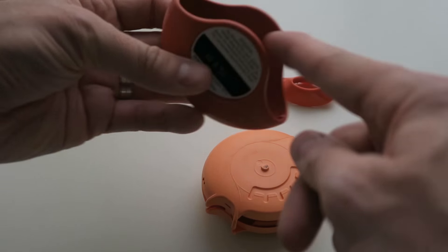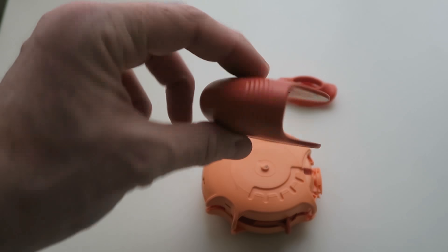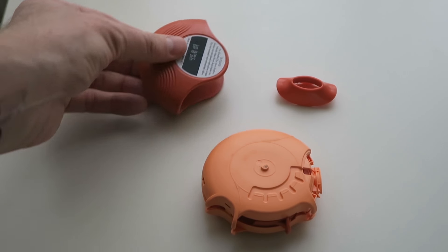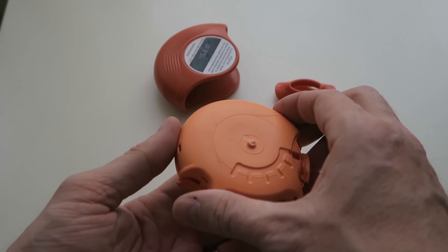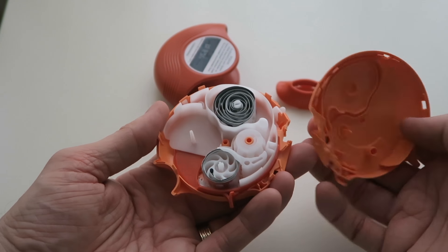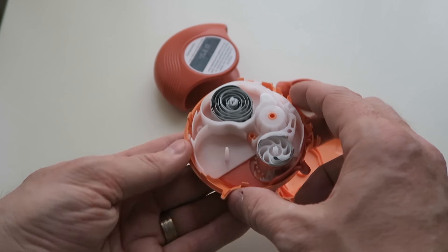So you see I've taken the disc out of the inner shell. Nothing very exciting about that little piece of plastic there. I've taken the mouthpiece off, and then once the mouthpiece is off you can open up the actual disc on the inside.